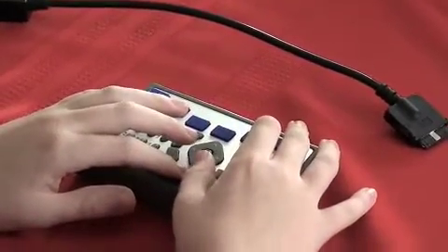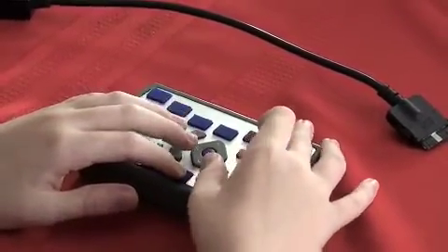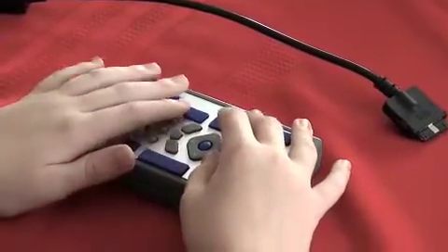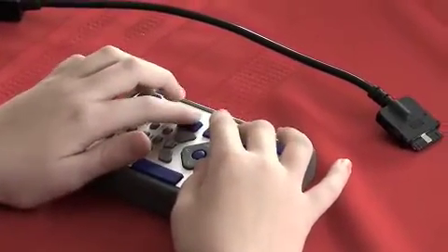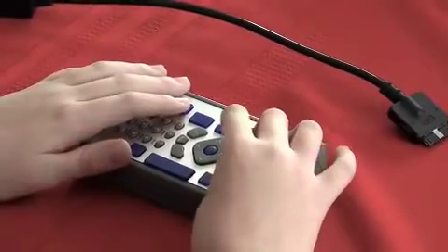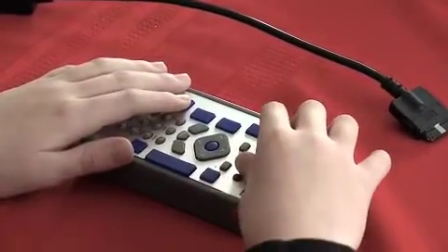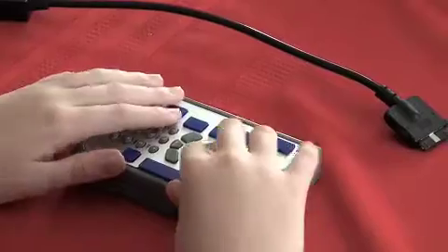And the key to the right of that is Control. This can be, such as if you're in a web browser, you can press Control O to open a new web page. So just things to make using the device easier so you don't have to go through the menus all the time.